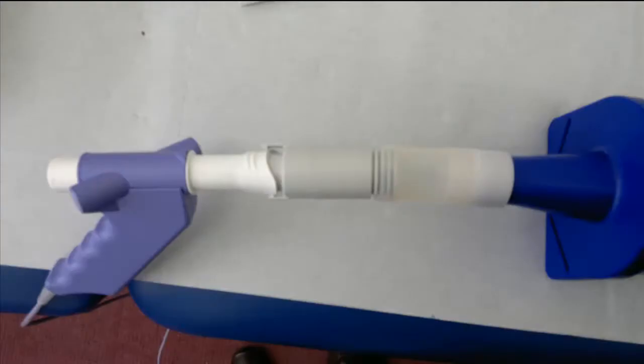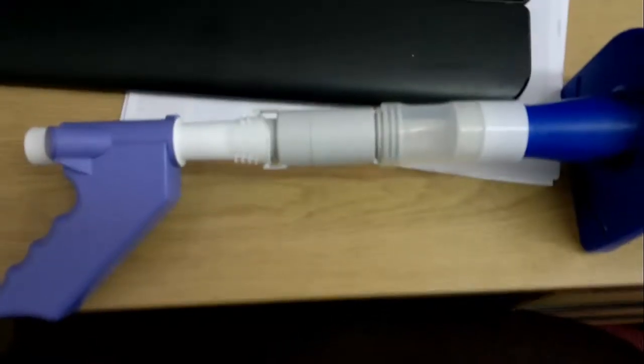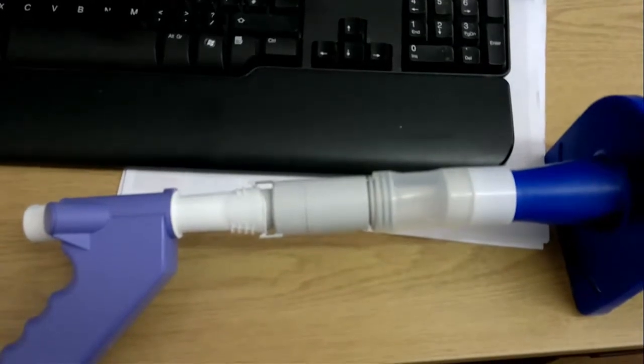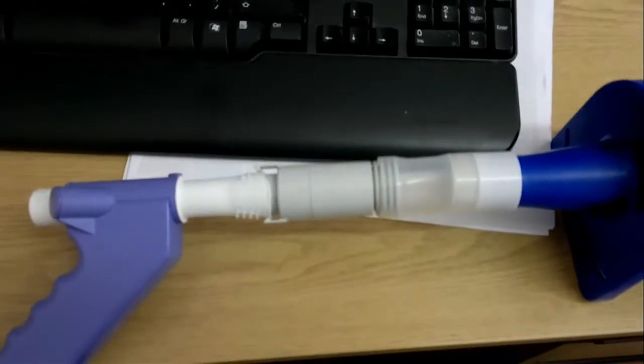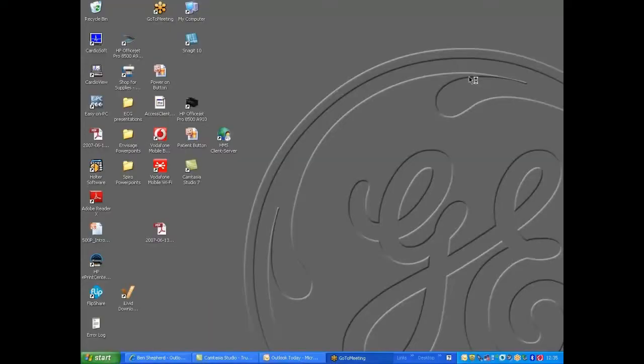The rubber ending of the adapter needs to be pushed onto the end of the syringe. As shown, place on a flat surface to perform the test.